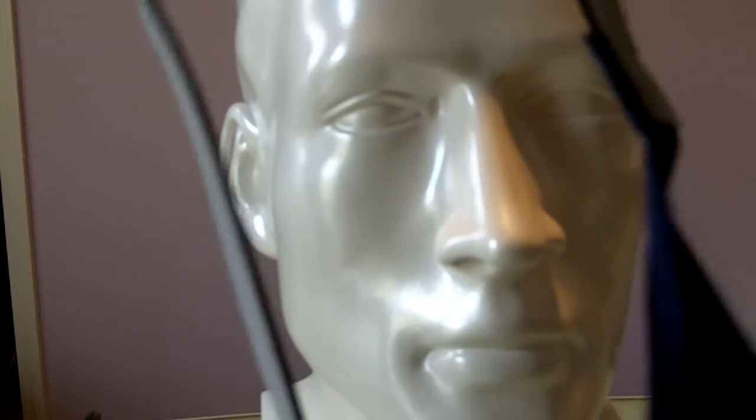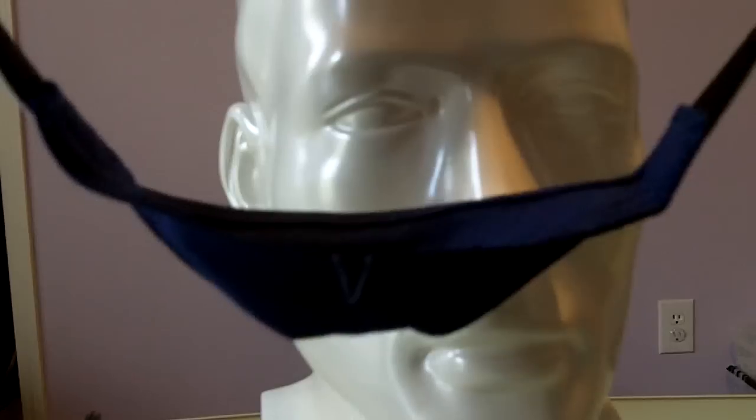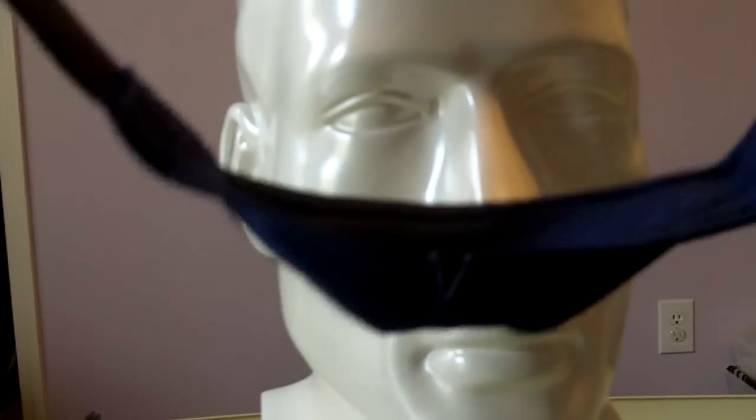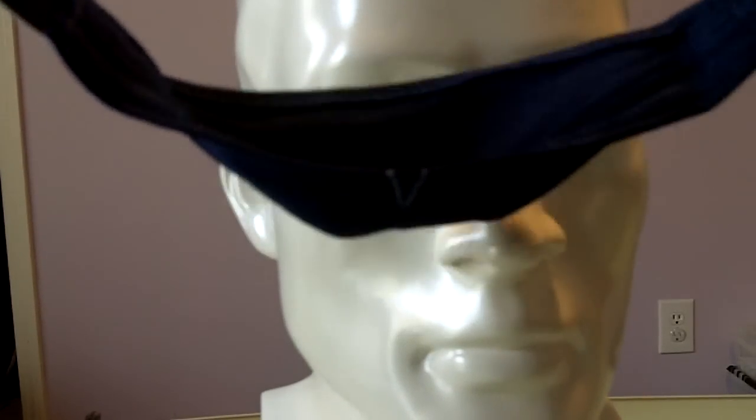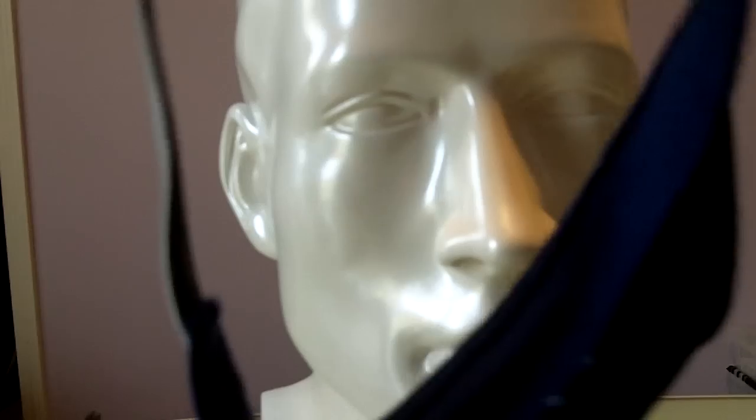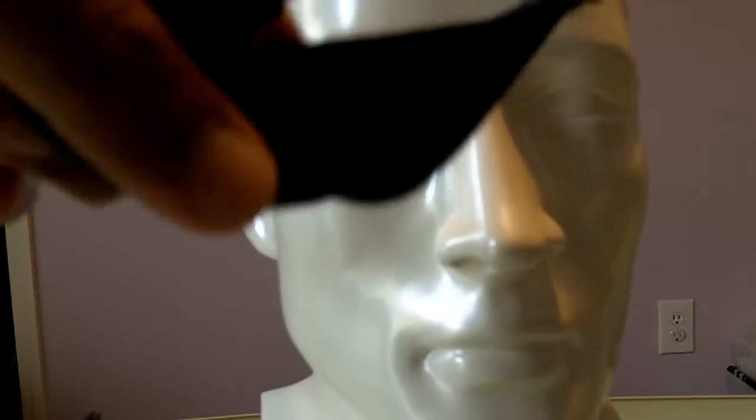By the way, talking about slipping off, a good number of people have said that depending on the type of hair they have, if your hair is very soft and silky, this tends to slip away.